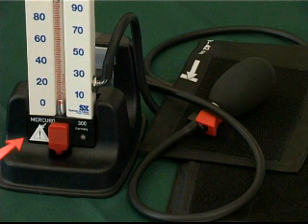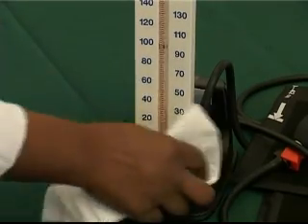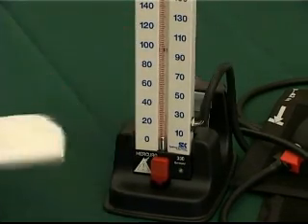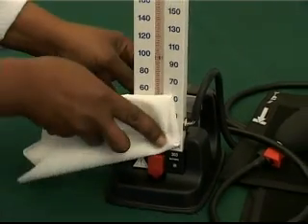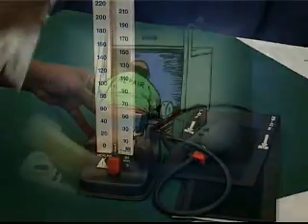The mercury column must be visually checked prior to use to ensure that the level of mercury is at the zero point on the scale. The column must not be dirty. Black sediment on the inside of the column or on top of the mercury would indicate that the mercury is oxidizing, meaning that it has had contact with air and that the rubber washers need to be replaced. There must be no loose mercury inside the case or anywhere. Any change in the mercury level would render the unit inaccurate, in which case the unit should be taken to a qualified technician for repair and recalibration.